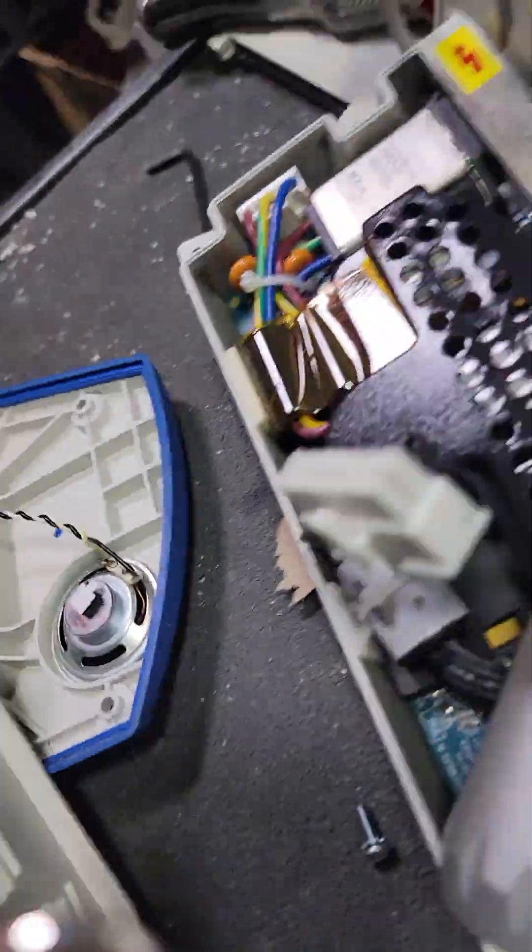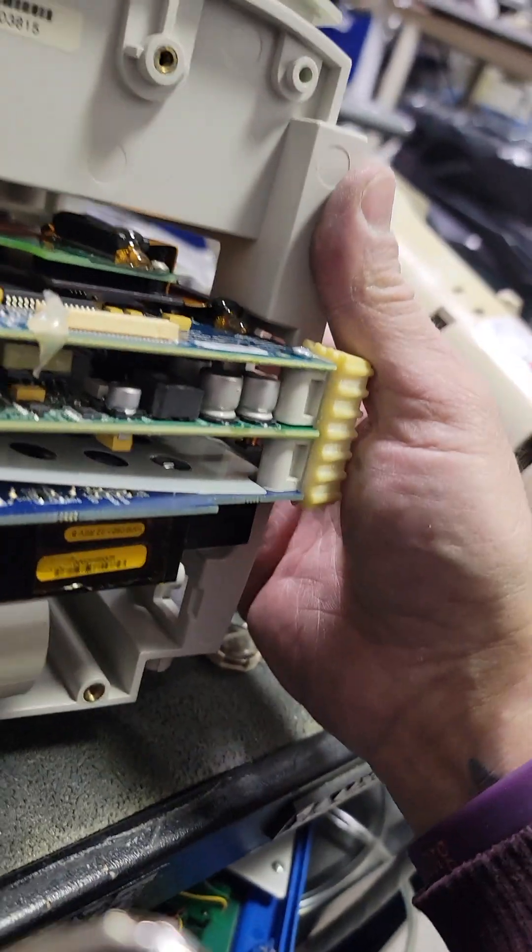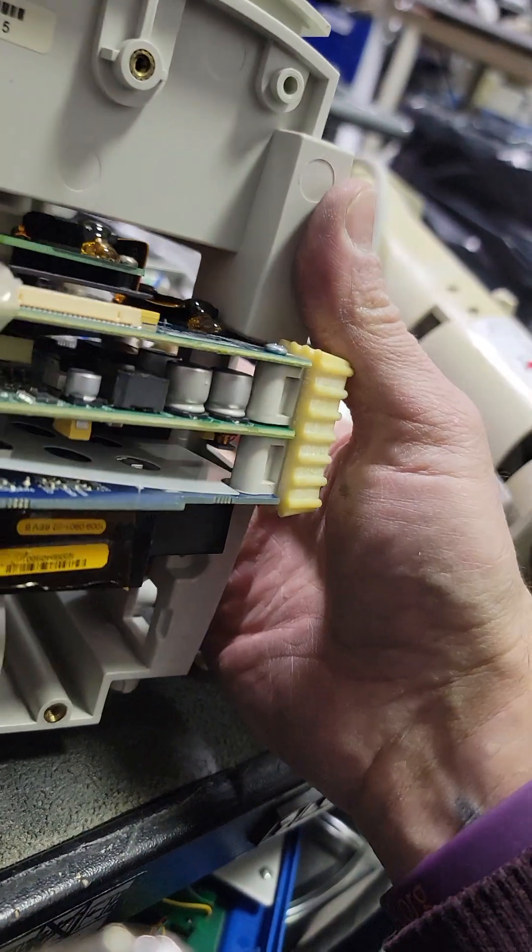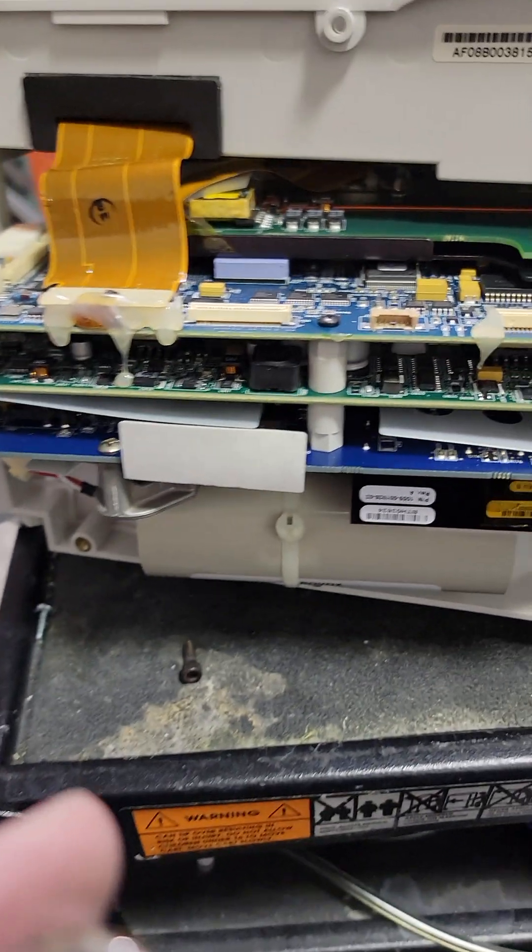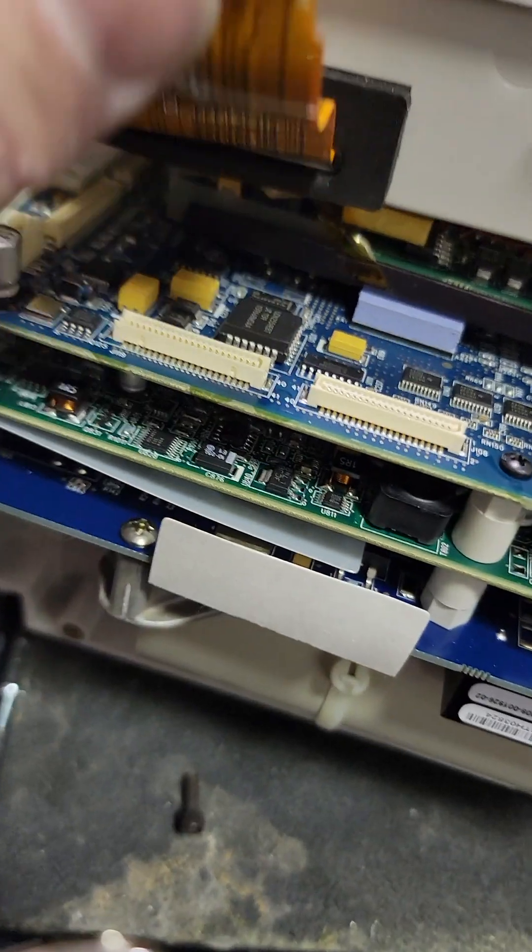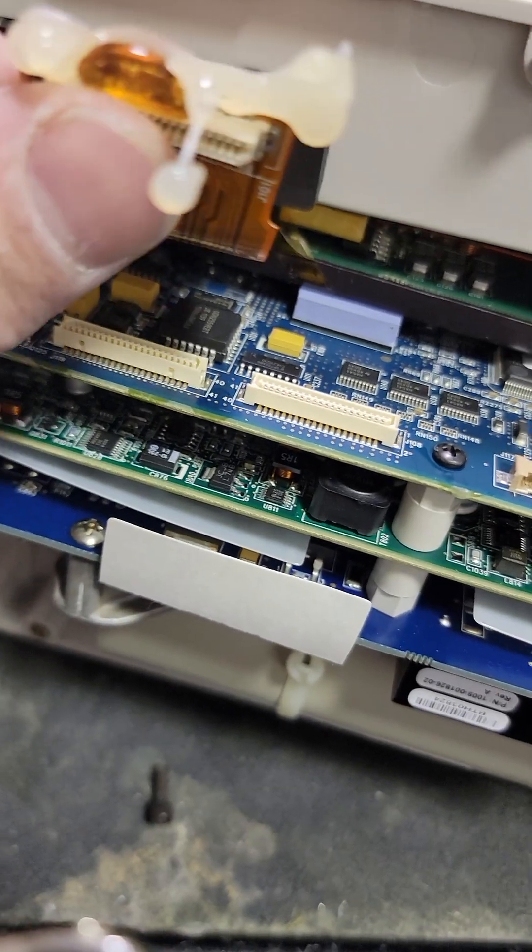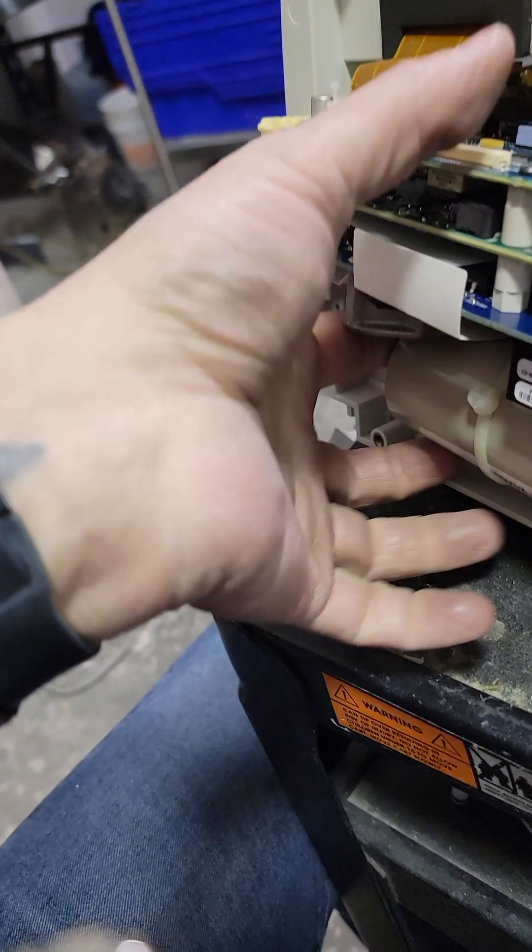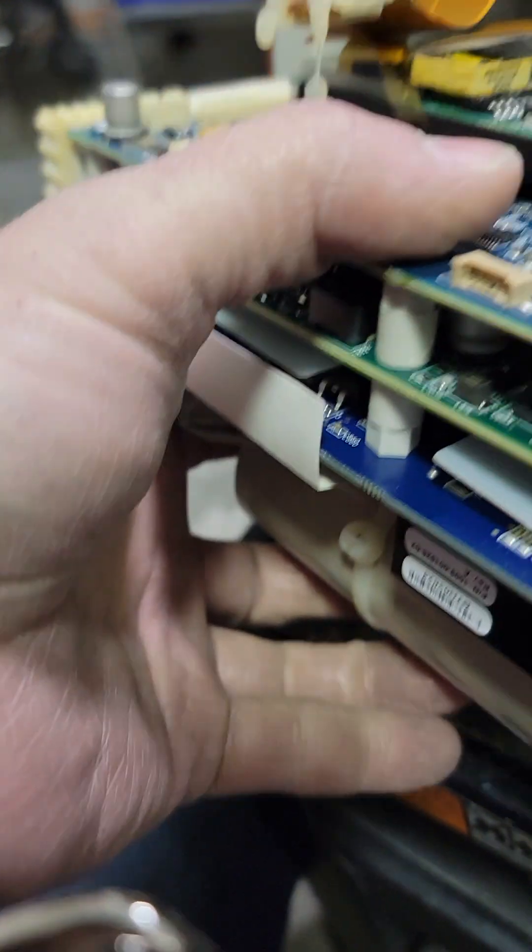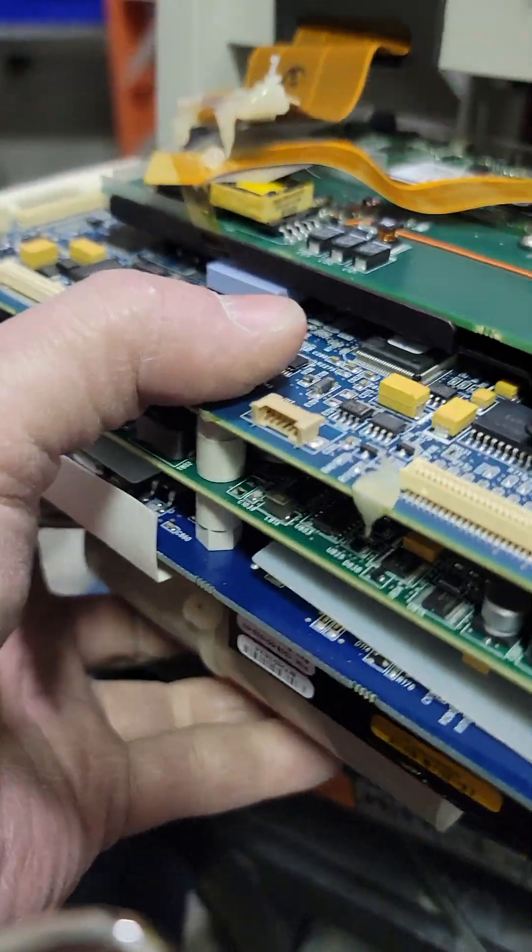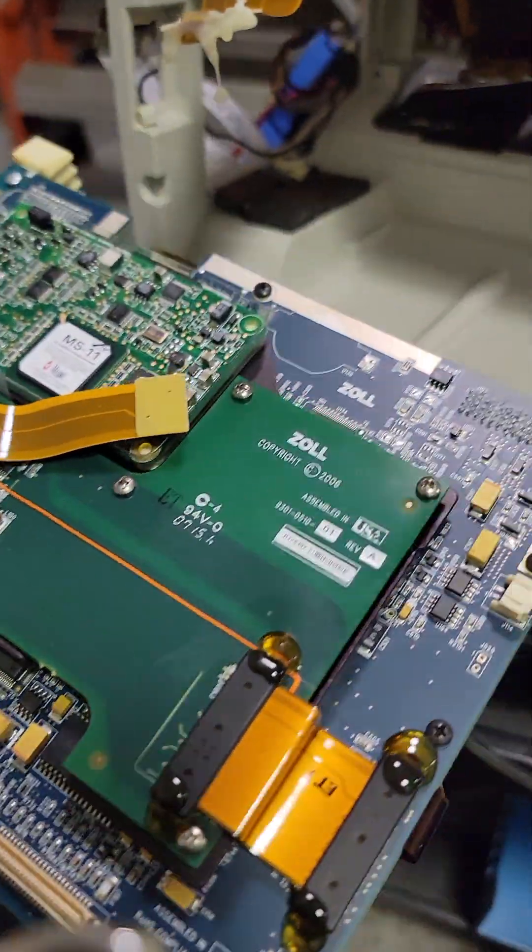Then, another thing left would be this cable from the printer. Let's see how far out we are right now. Almost get to that battery. Alright, so pull this glued on connector off. Watch this little ribbon cable here. Push that in. And now you've got, I don't see anything left, so there we are.